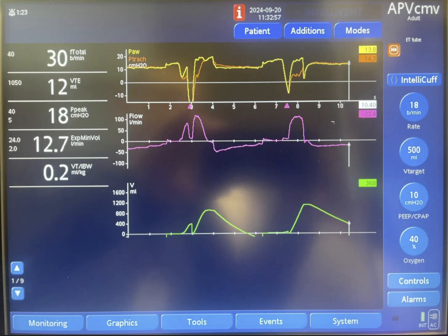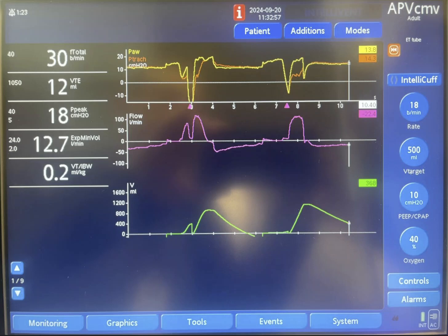I had this complicated patient-ventilator asynchrony and I thought I would share it with you and try to make sense of it. The patient is on APV-CMV, which is a pressure-regulated mode targeting a volume of 500. The pressure goes up and down based on a feedback mechanism from the previous breath, based on the resistance and compliance of the system. You can see here pressure over time, flow over time, and volume over time.